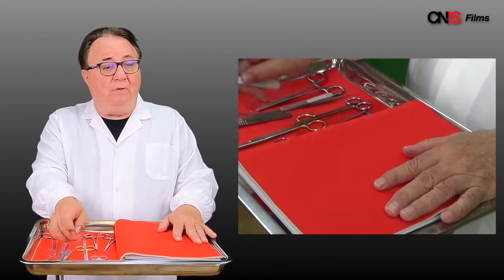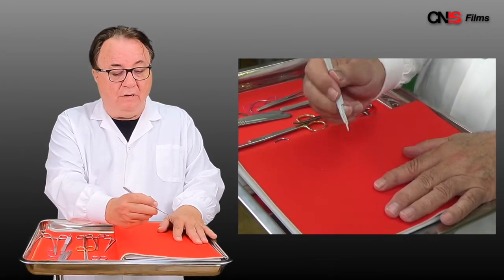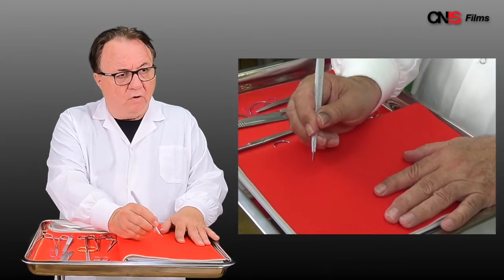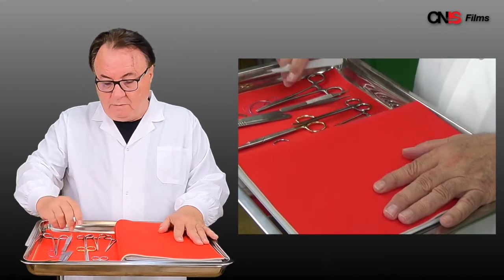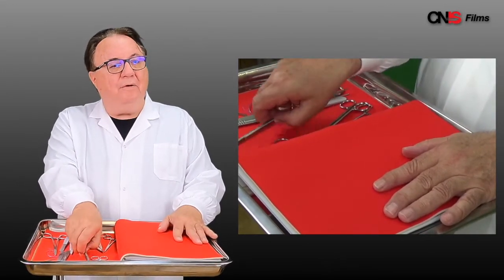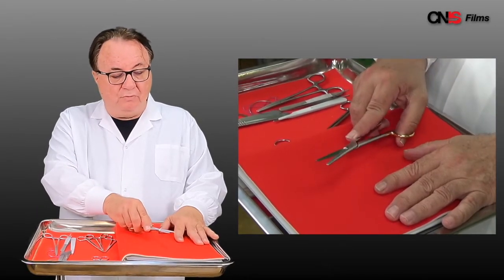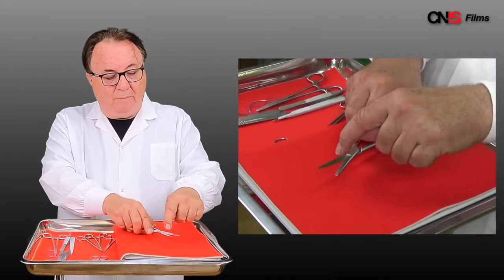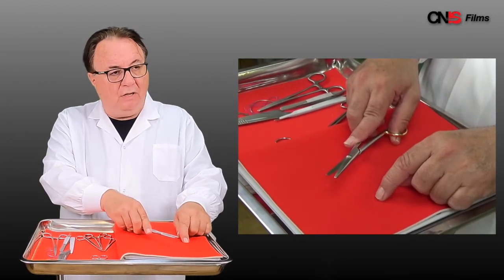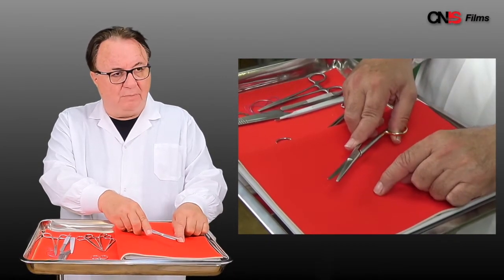It's true of the scalpel. Thumb, third finger, index finger controlling the tip. You know what you're cutting and you control what you're cutting. One problem you can have is past pointing. For example with your suture scissors, you don't cut back here in the jaw. You cut in the forward part of the jaw so that you don't grasp tissue that wasn't intended to be cut.